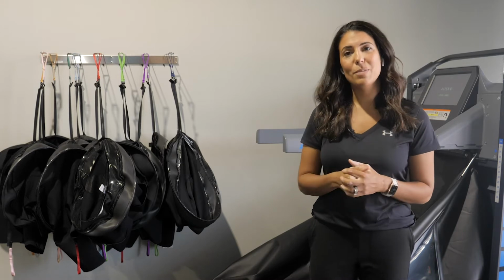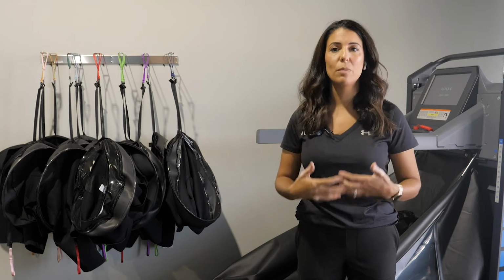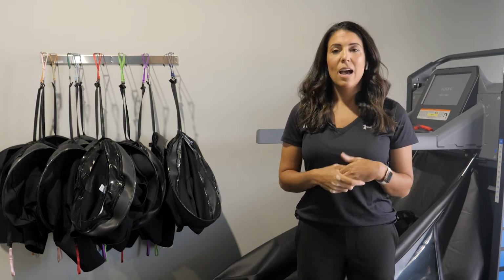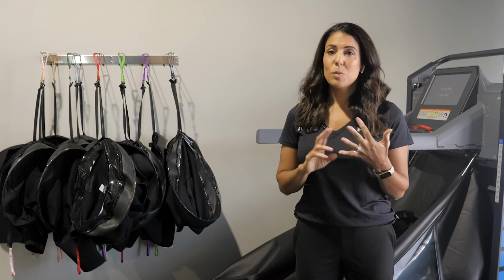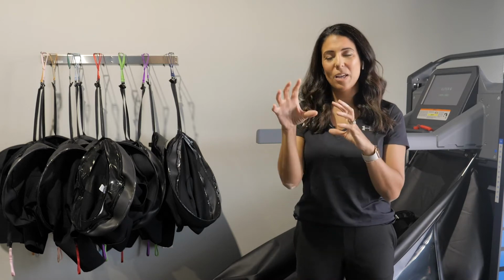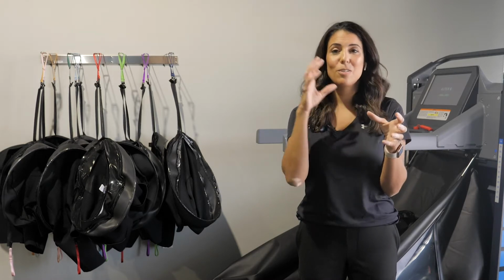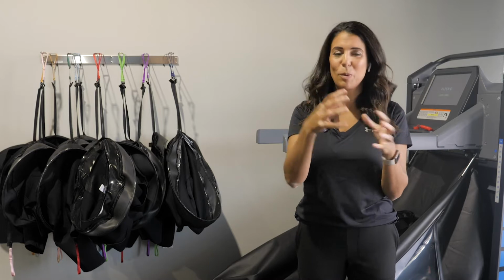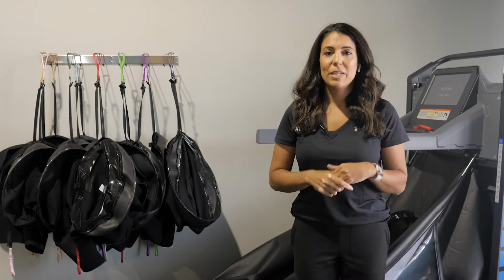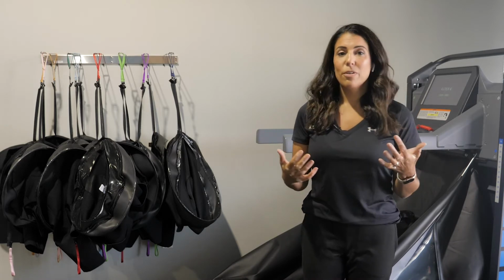But the treadmill sometimes gets forgotten about, and its ease of use simply to start enabling more mobility and enable patients to start working on endurance. I always like to say that working on endurance, mobility, and strength are all together, right? You can't work on mobility without increasing endurance, and you really don't work on increasing endurance without building strength, which leads to better mobility. So the treadmill allows you to work on all of those components, again, for a wide variety of patient populations.